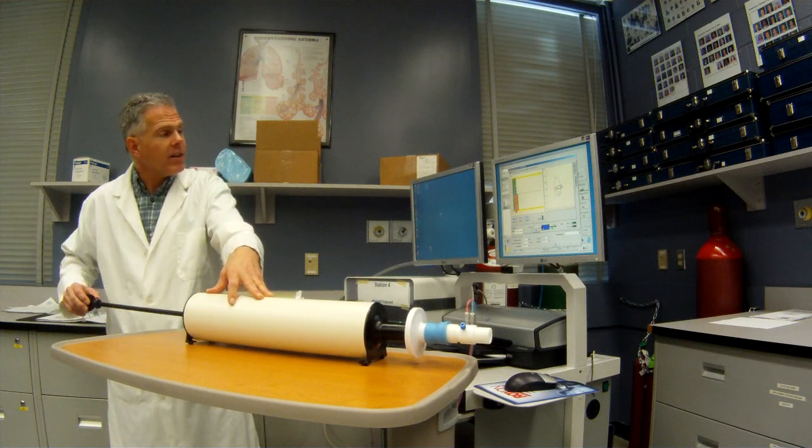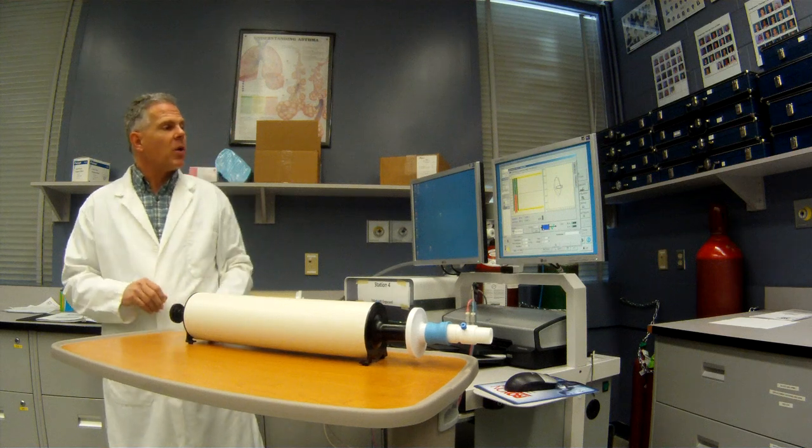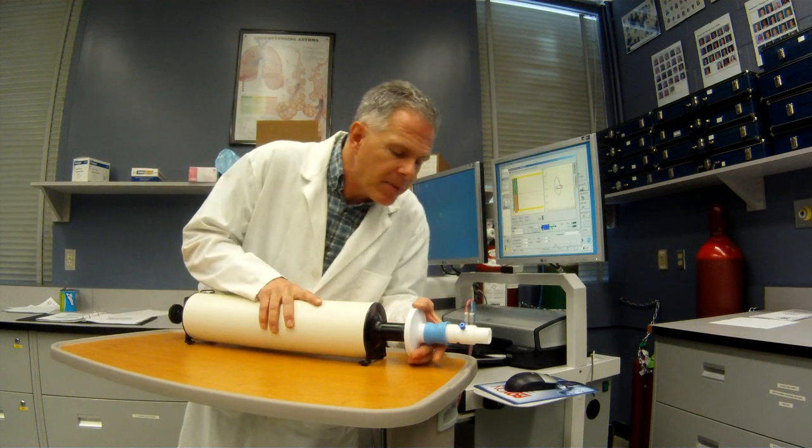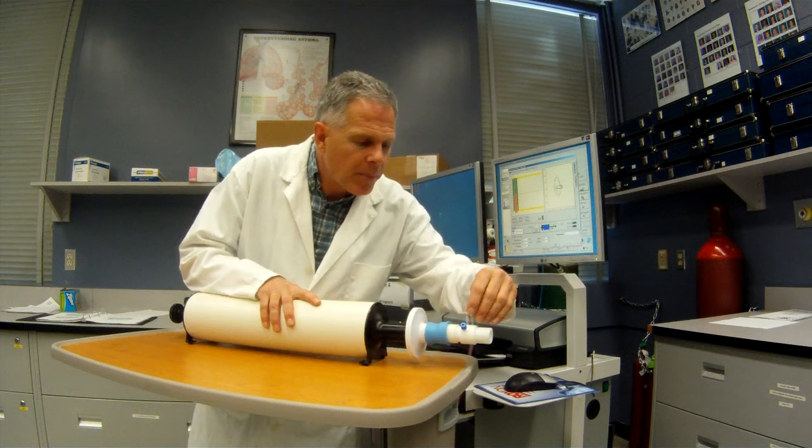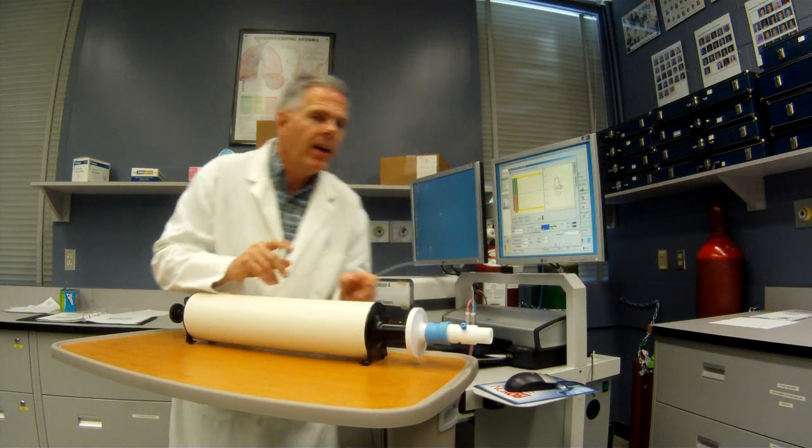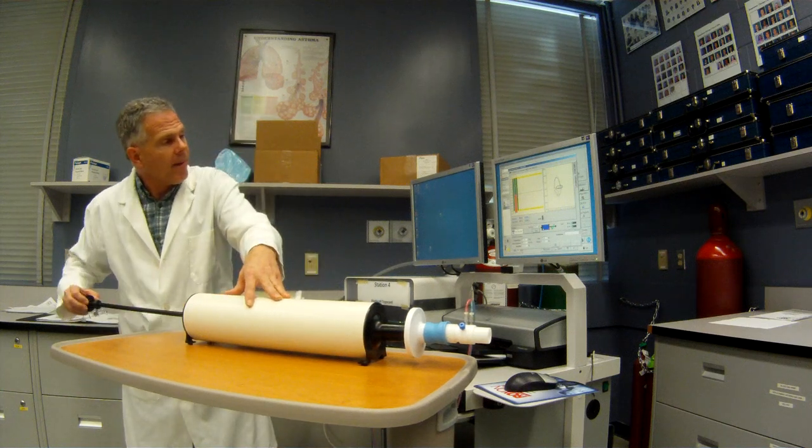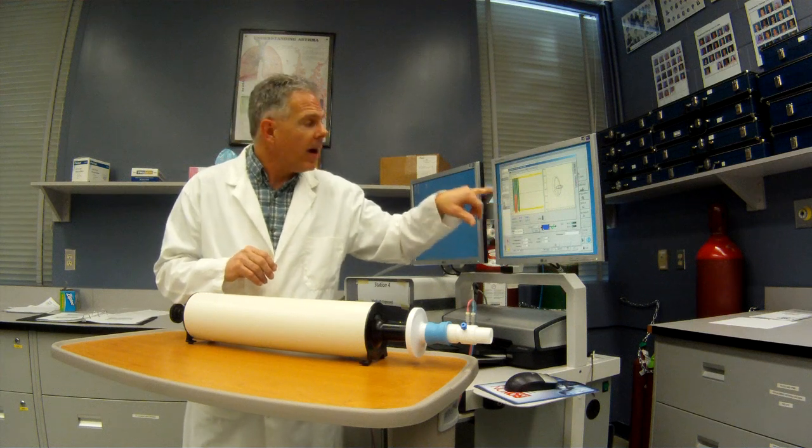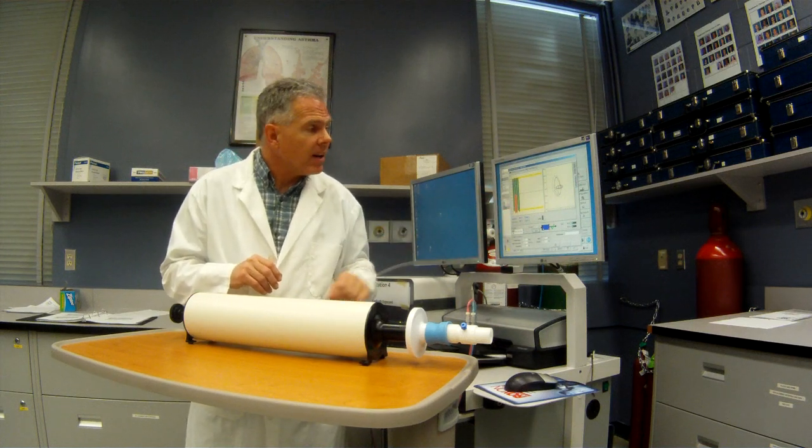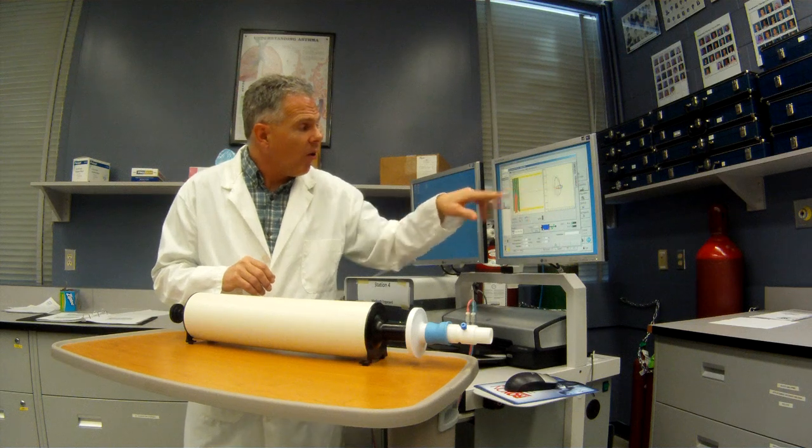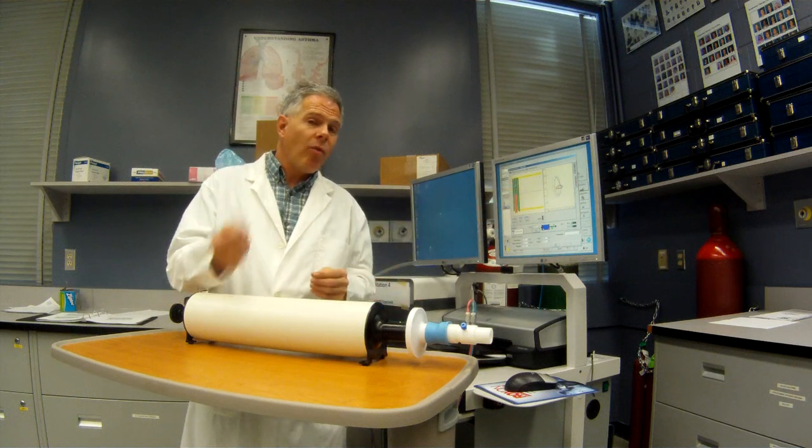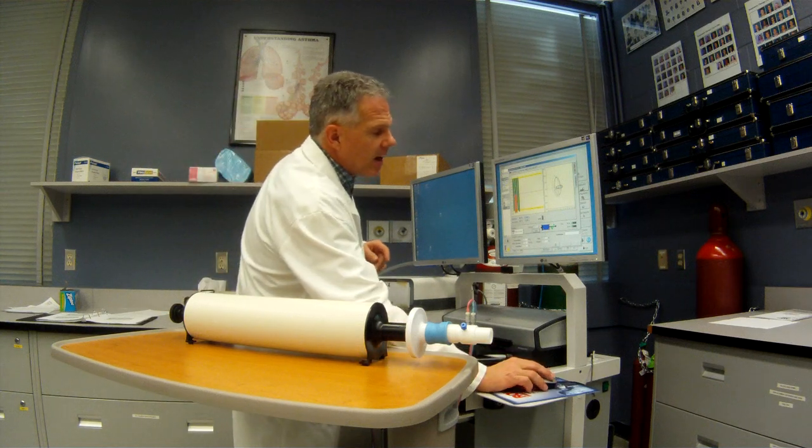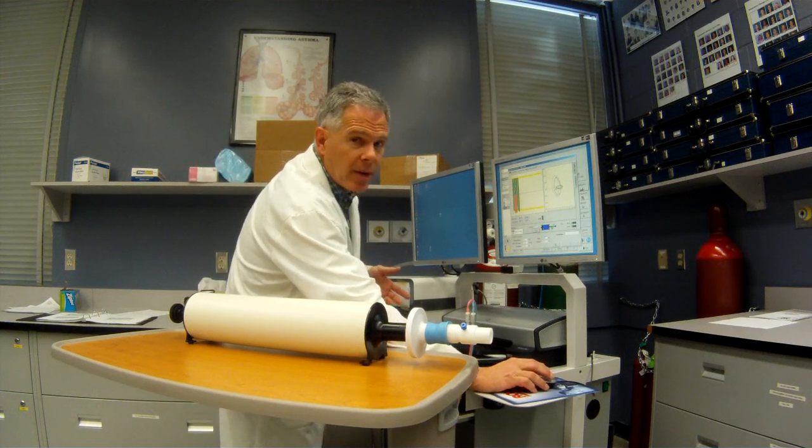And of course, as I'm going to demonstrate this today, I'm going to be having all kinds of problems. So I've got a couple of red bars there that show me that maybe potentially I've got a little leak in my system or something might not be working quite right. So I'm going to make sure I'm going to verify this some more. So those ones rating on my 3 liters plus or minus 3%. So now that's at my high flow. So I've verified it at low flow and high flow. So I print out this test report and sign off that it's been calibrated and verified.